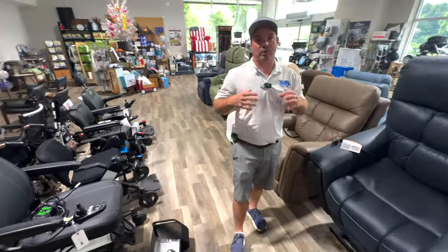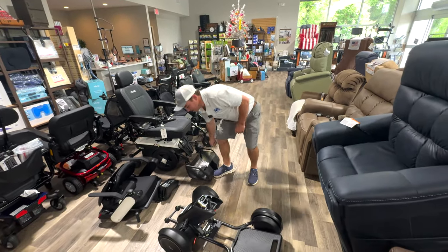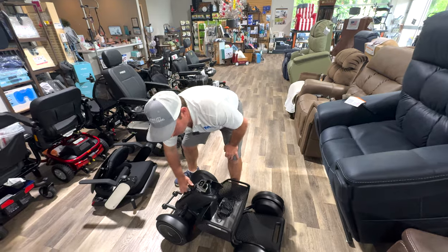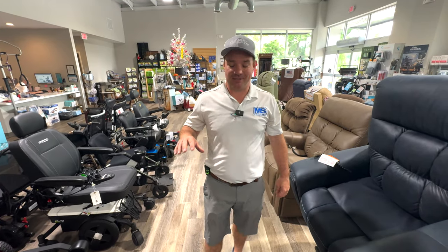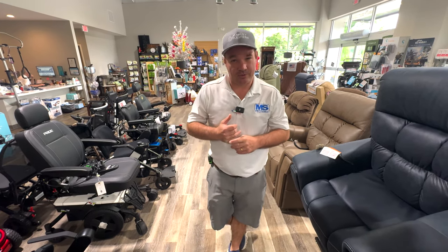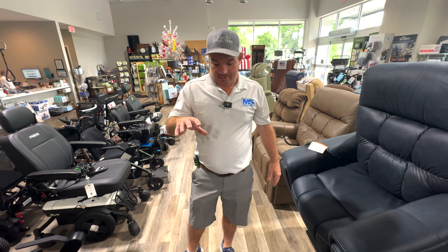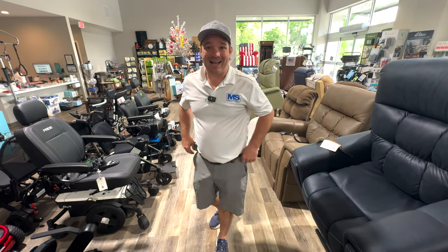We sell a lot of these chairs to people that are very, very active. You can travel with this through the airplanes, you can take this to a lot of places. We're about to shoot a lot of videos on people that have bought this chair and the benefit it's brought to them. I just did a delivery two hours away to a lady that's in one every day and she absolutely loves it — her kids can take it apart and put it in her car. A better chair for her would be like a Quantum rehab chair, but you can't take it anywhere. She knows that's a better chair for what she needs, but she loves the Seatis — it's the second one she's bought and she travels six times a year.